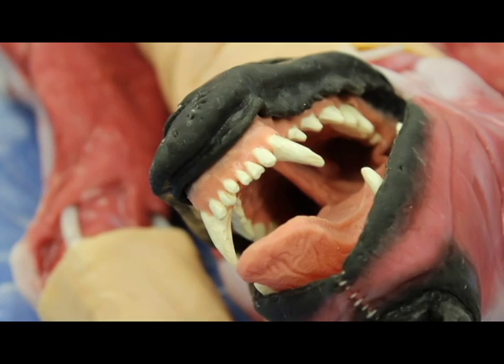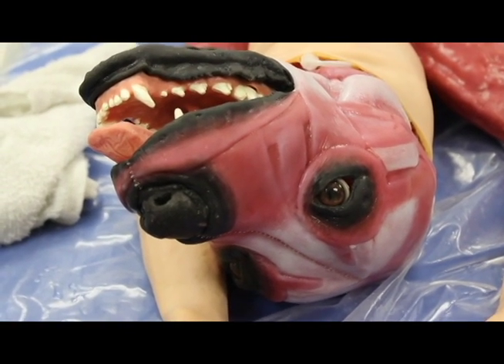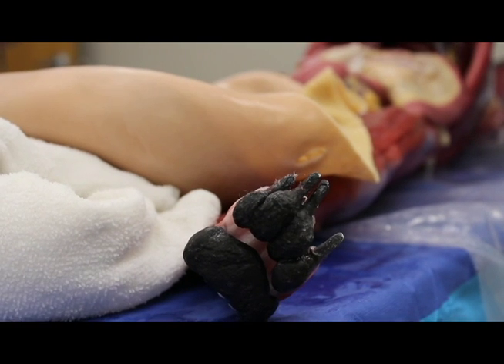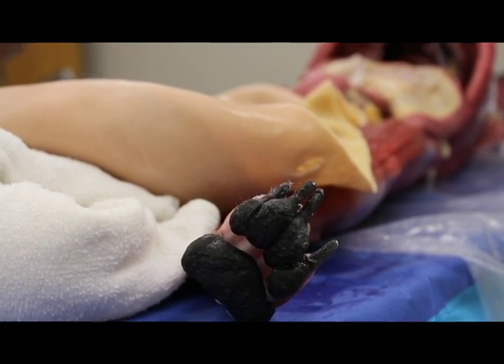We've gotten everything from 'it is so awesome' to 'that is going to give me nightmares.' I get that, I definitely get that. And again, it really is going to reduce how many live animals we're having to poke.